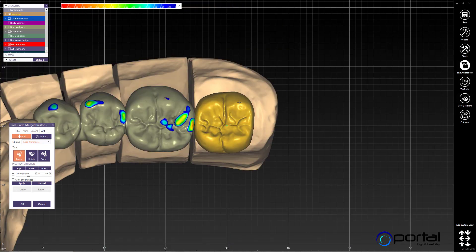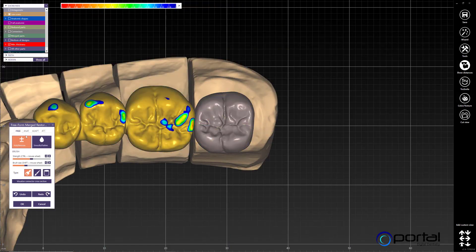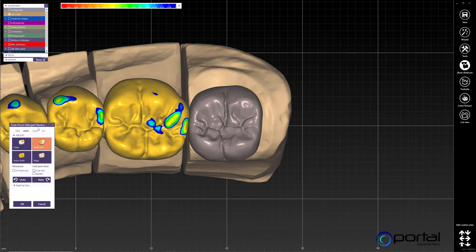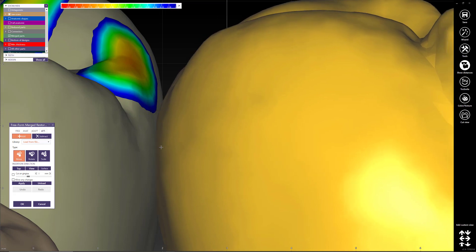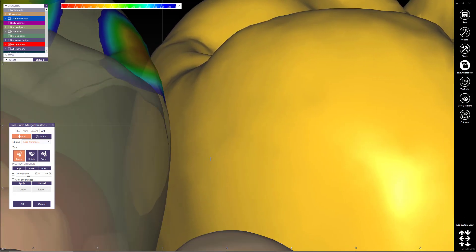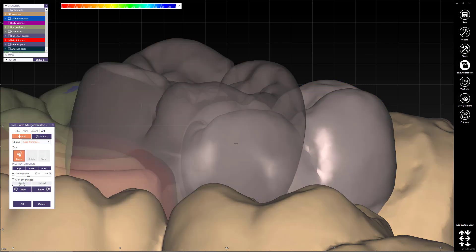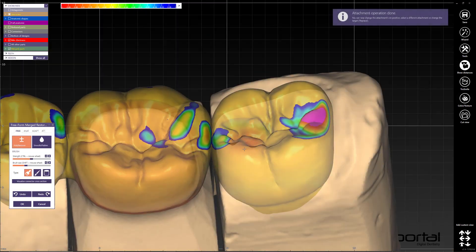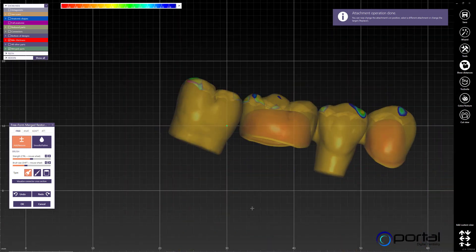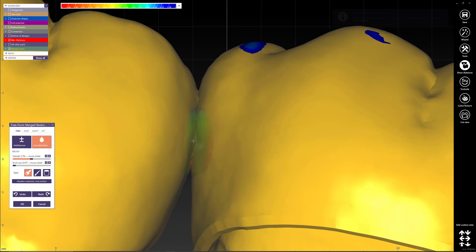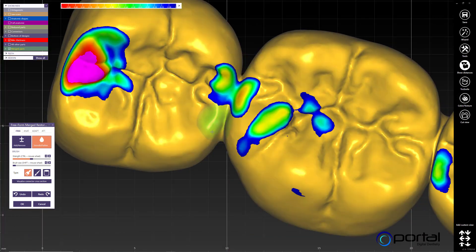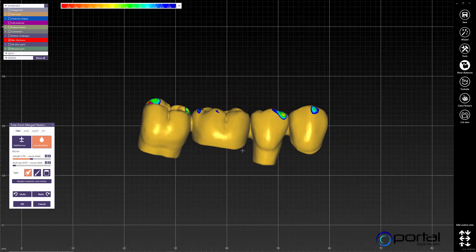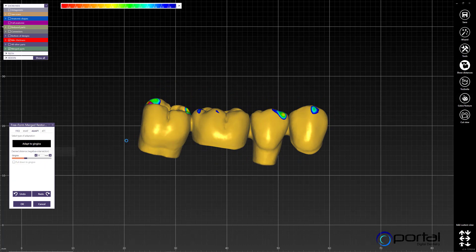It did import the number seven on the opposing side, so I'll need to make changes in free-forming to make it look more like what we're looking for. I want to make sure I'm making contact and going through the adjacent mesh, then click Apply and it'll add it to my restoration — it's now part of my bridge. I can extend the connector I just created.